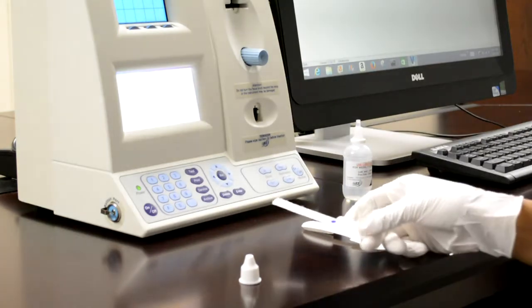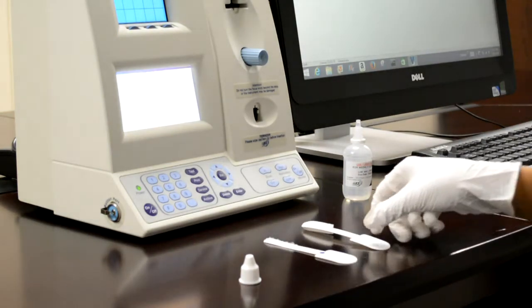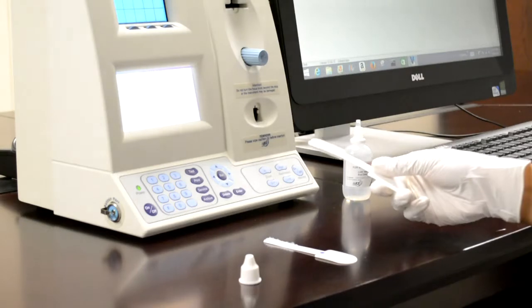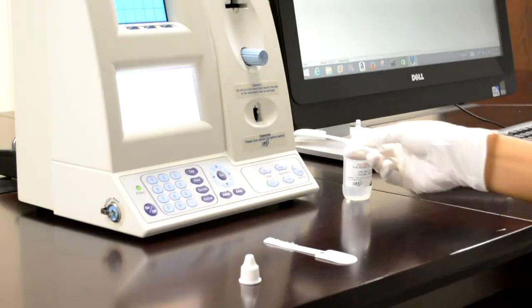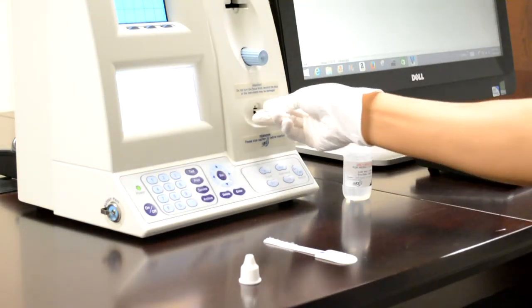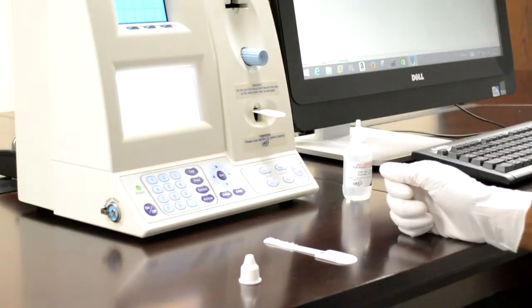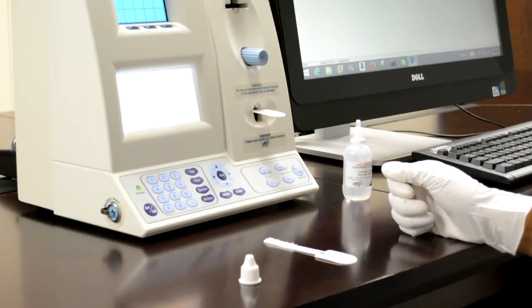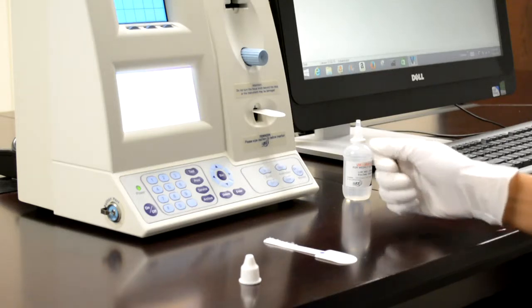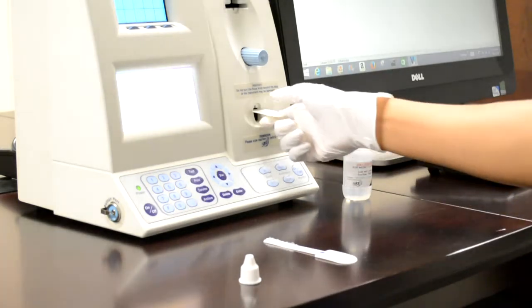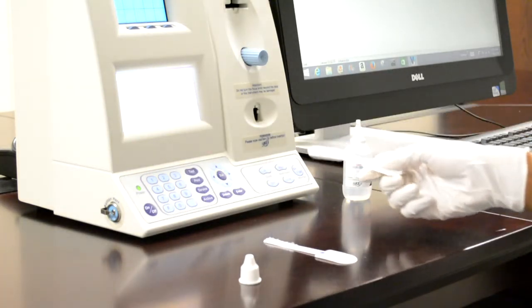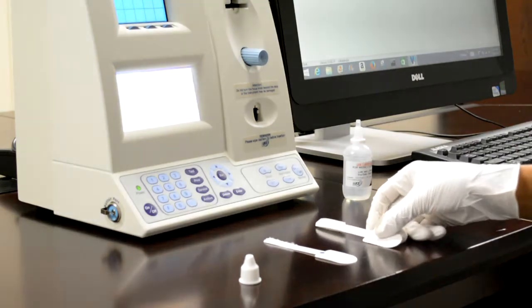You will now take the spongy drying paddle and insert it into the instrument and let it rest for about 10 seconds. For this paddle, you don't want to scrub it in and out. Just allow it to stand. You then remove the paddle and your weekly maintenance is complete.